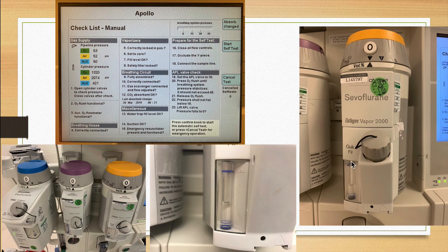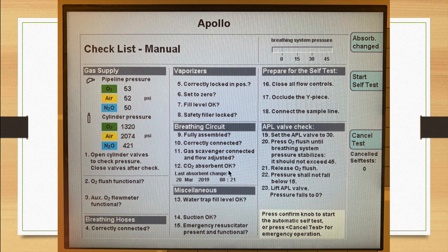Are the fill levels okay? This can be seen by this zoomed in picture of this little vial here. And this meniscus right in the middle, if this were full, should be at the top. So this suggests that this vaporizer needs to be filled with more volatile agent. Lastly, are the safety fillers locked? These 3 guys here need to be screwed in tight. This particular one doesn't get screwed in though. You have to push this in. It's a pin mechanism. As long as all 3 are locked into position, then 5, 6, 7, and 8 are ready to roll. Okay, so the next steps are regarding the breathing circuit.